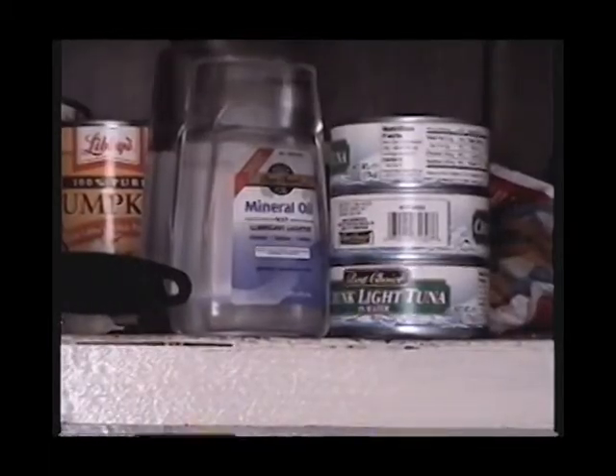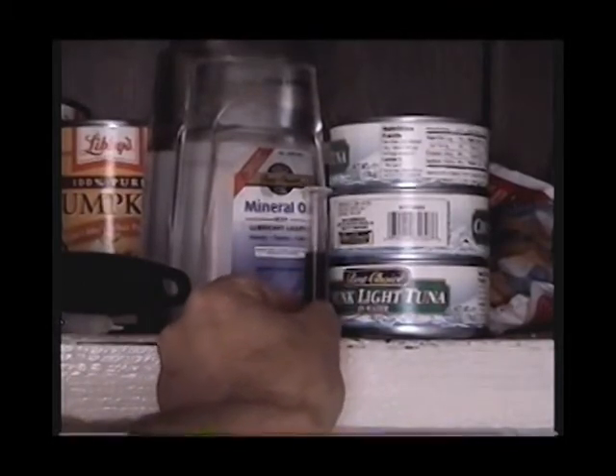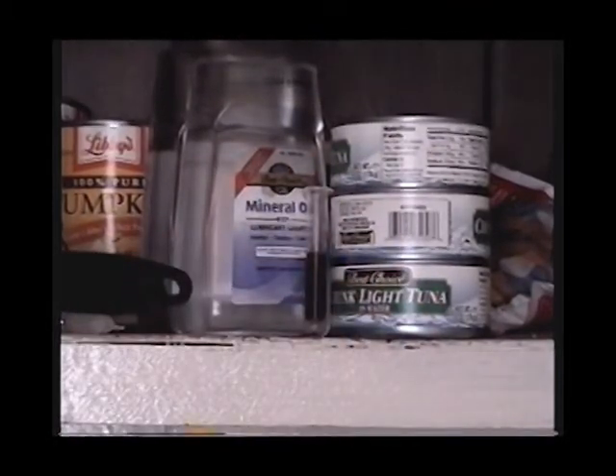All this stuff goes in the trash and then you're waiting on your test. You just take your blood, set it up in a cupboard or wherever, after collecting it and putting it in the test tube — wait around an hour or so. Warmer weather it'll tend to be quicker, colder weather it'll take a while. I'd recommend putting on some kind of heater or warming up the room a little — it just helps with the separation.